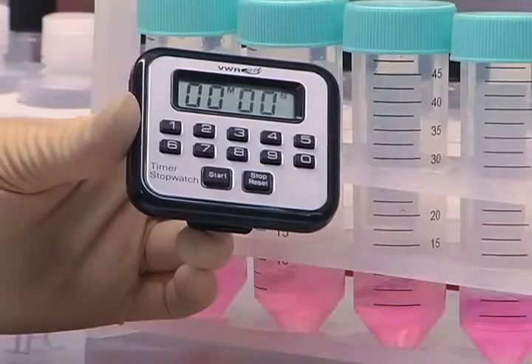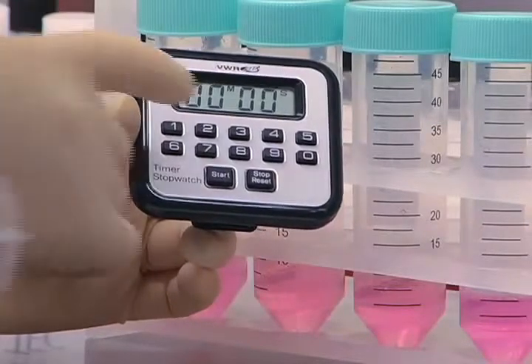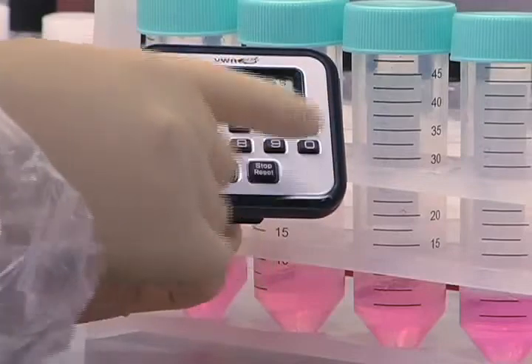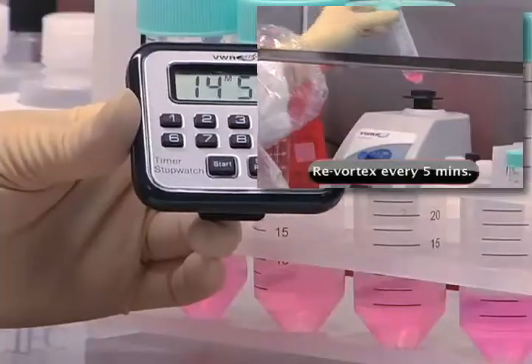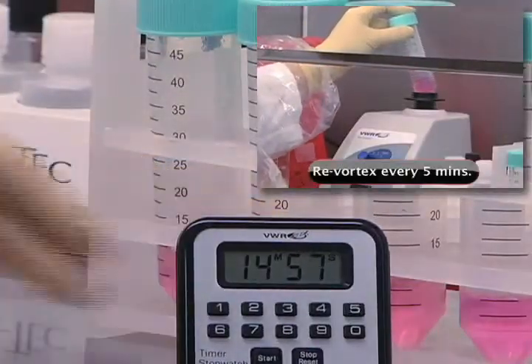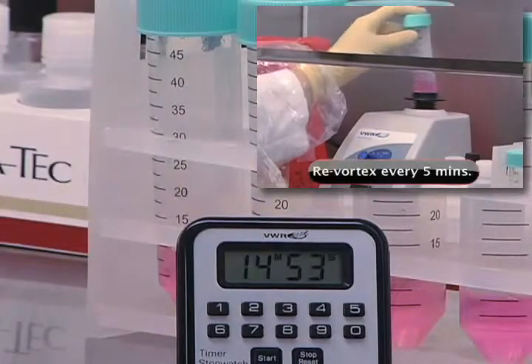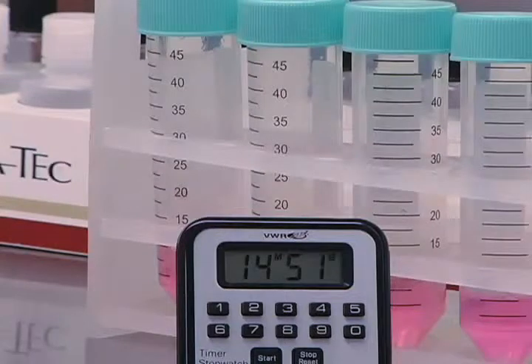Tighten the caps on the centrifuge tubes and vortex each specimen for 30 seconds. Allow each specimen to decontaminate for 15 minutes at room temperature. Re-vortex the specimen approximately every 5 minutes during the decontamination procedure. This will re-suspend the bacteria and cells in the sodium hydroxide solution.